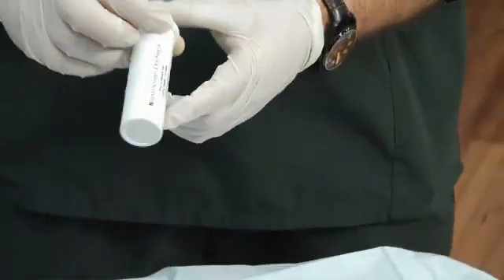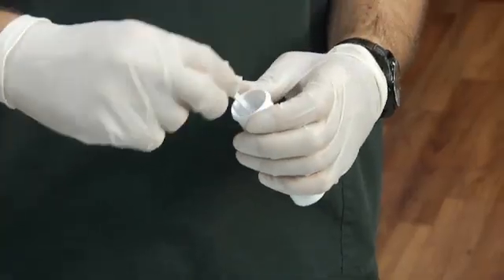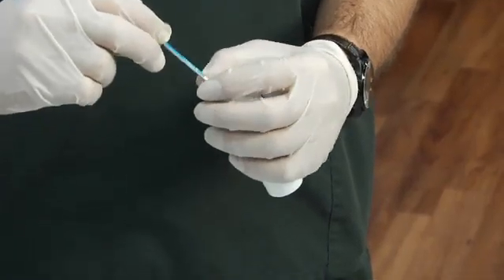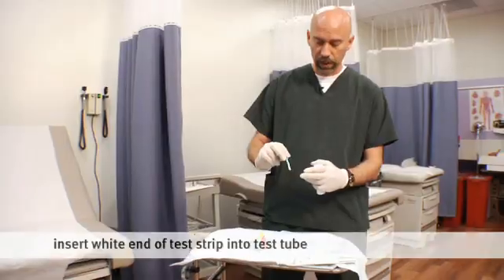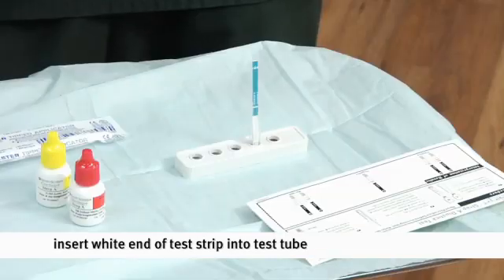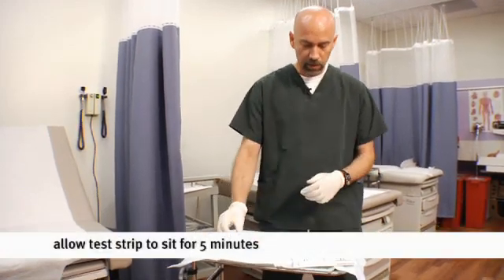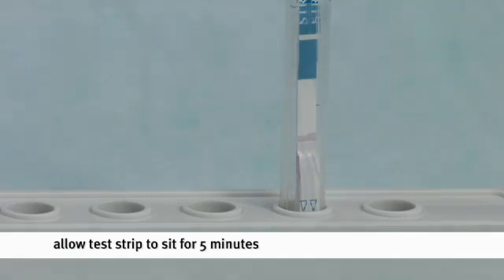Okay, our next step is we're going to take out one of these dipsticks, and this is going to be the actual part of the test that we'll be able to read to see the results. And it's very simple to do. We're going to insert the white end into our test tube. And we're going to let that set for 5 minutes, and make sure that you mark your time. And in 5 minutes, we'll have the results of our test. If that bacteria is present on the cotton swab, when we add the reactant, it's going to show positive.